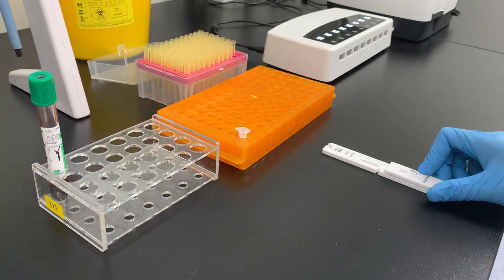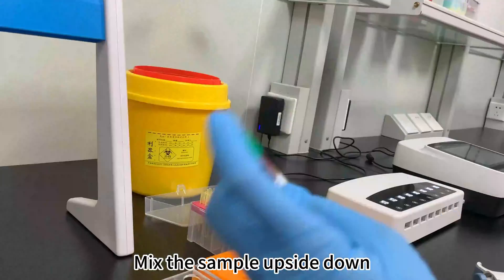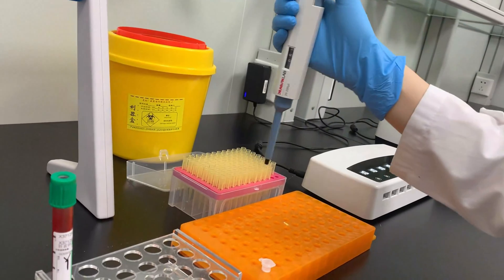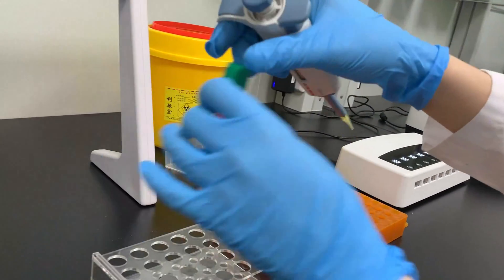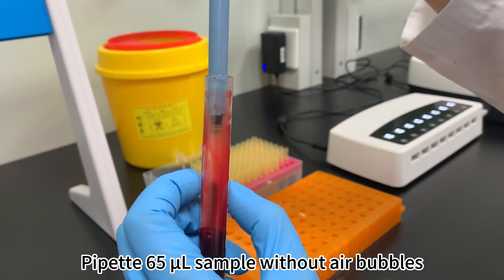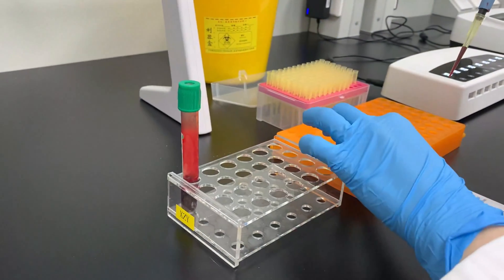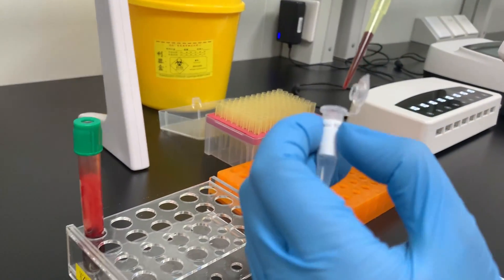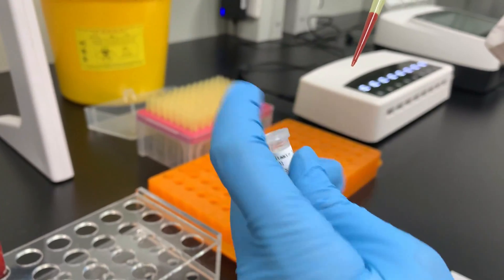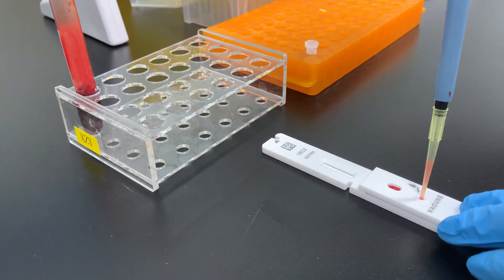Take out the test cassette. Mix the sample upside down. Pipette 65 microliters of sample without air bubbles into the diluent, then pipette 65 microliters of the mixture to the sample hole.